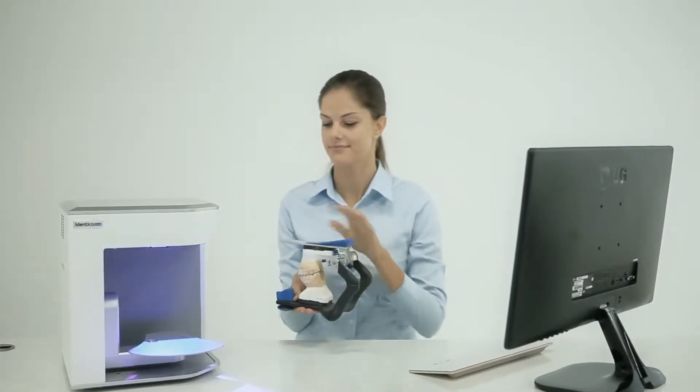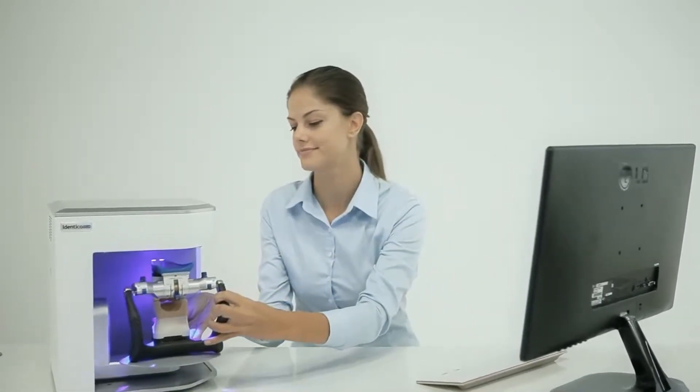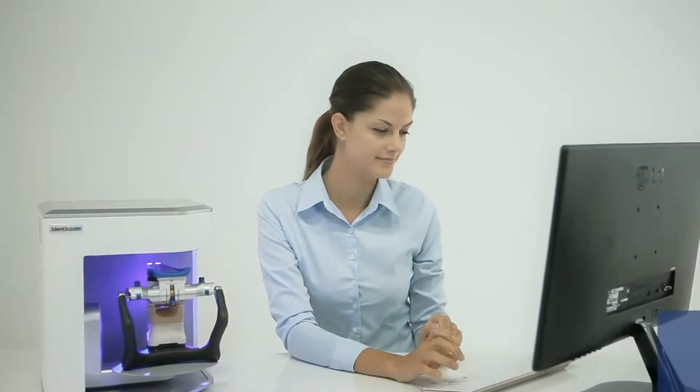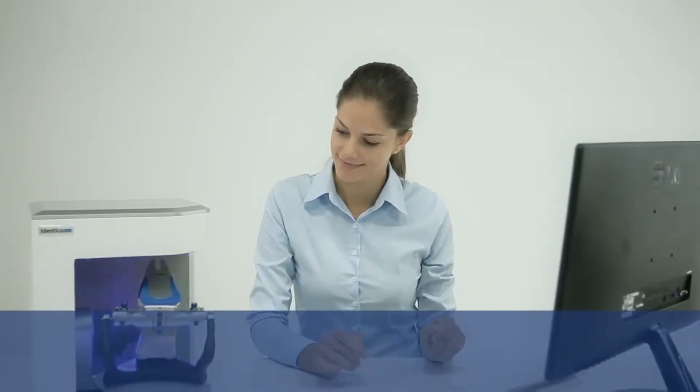Medit Dental, a leading manufacturer of precision 3D digital solutions, introduces the all-improved Identica Blue 2015.